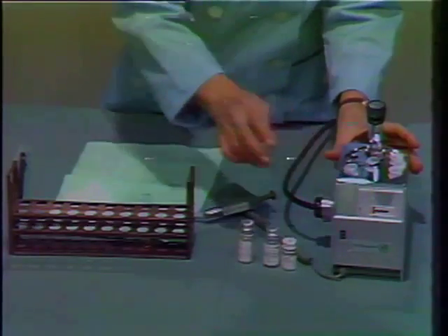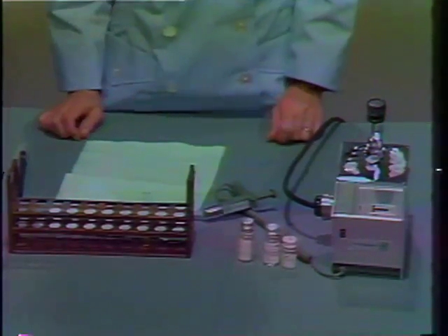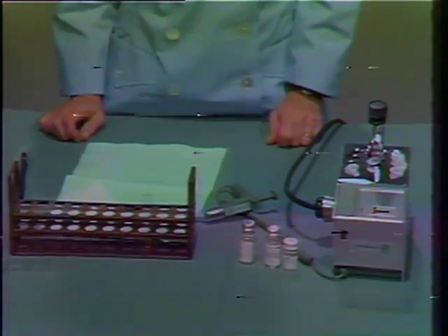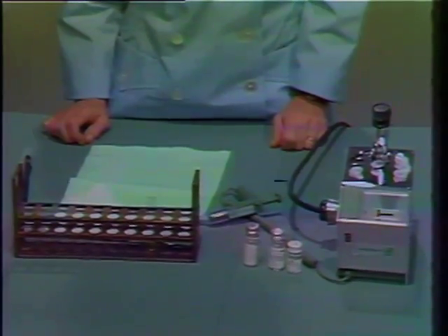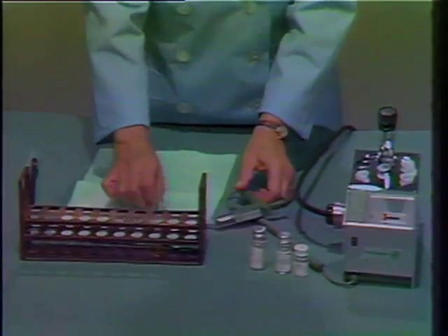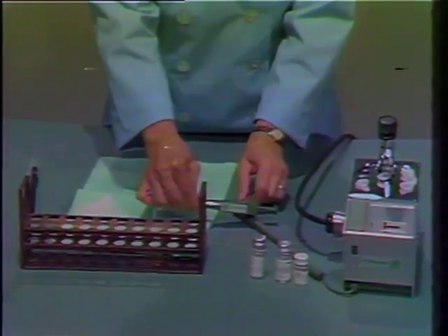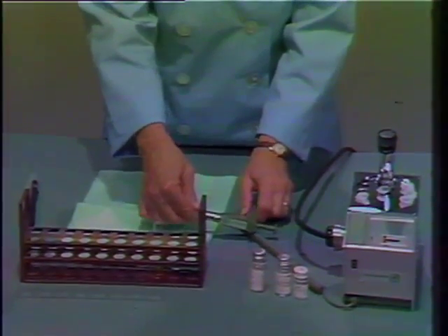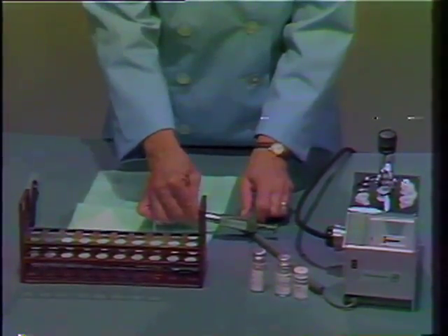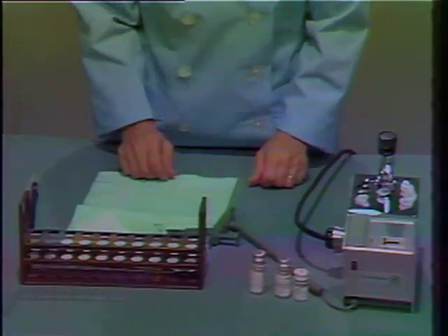The same machinery and the same settings are used for the partial thromboplastin time as for the prothrombin time. The reagents, however, are different for these different determinations.